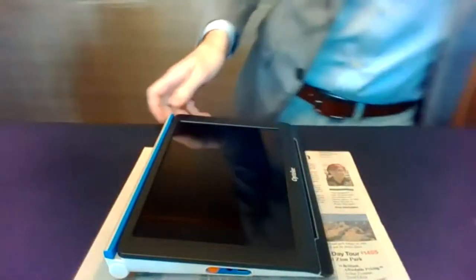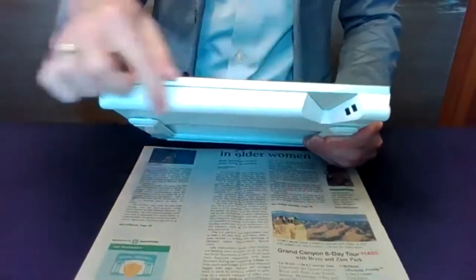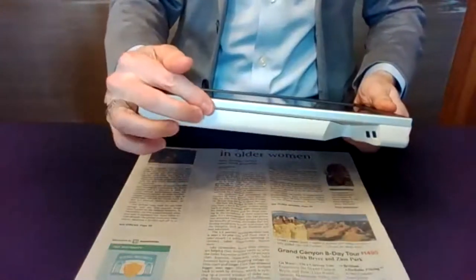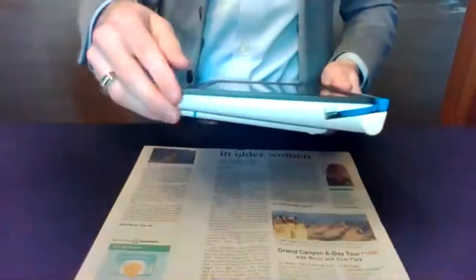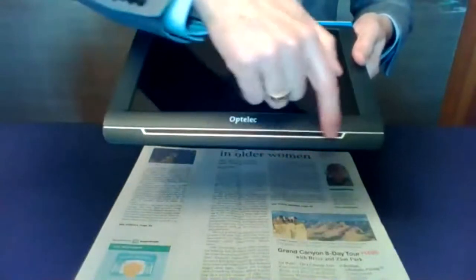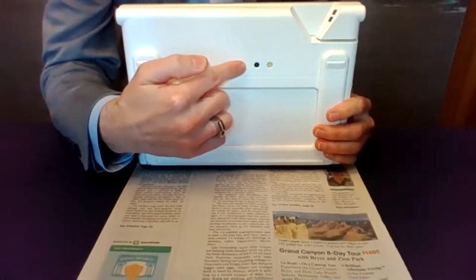On the top, you'll notice the camera and light — this is for the swing-out arm we were talking about. This is your top view. Just to show how that flips out — there it is when opened. Very easy to pull out and it automatically starts using that camera. The other side has nothing — very simple, clean ergonomic design. On the front there's a speaker built in for audio output. On the back is the other camera, which is a dual-purpose camera used when you're in the reading stand or when you're doing distance.